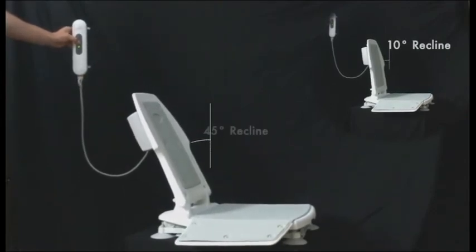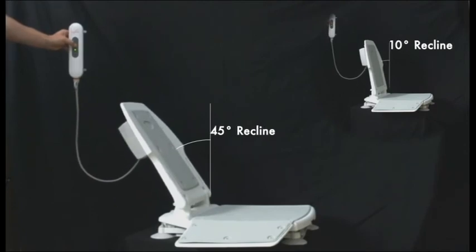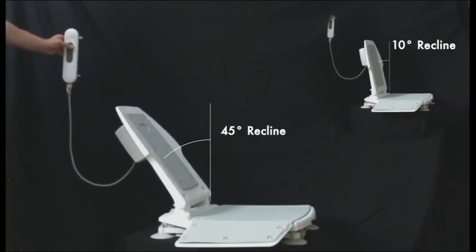Depending on the recline setting chosen before use, the down button will also adjust the recline once the lift has been lowered.